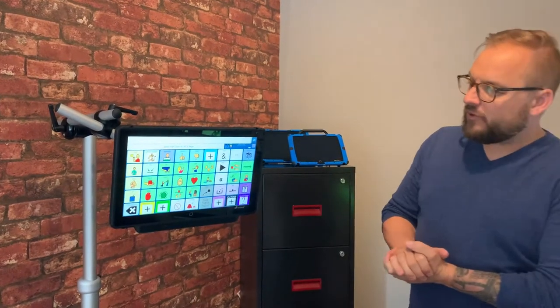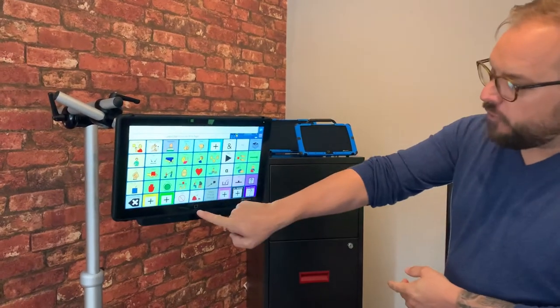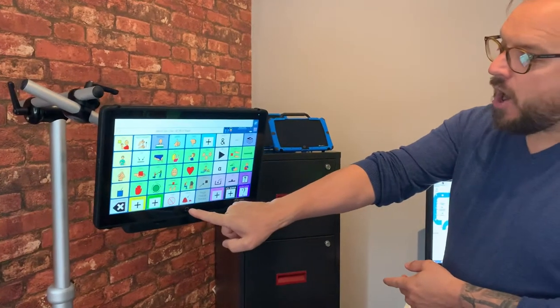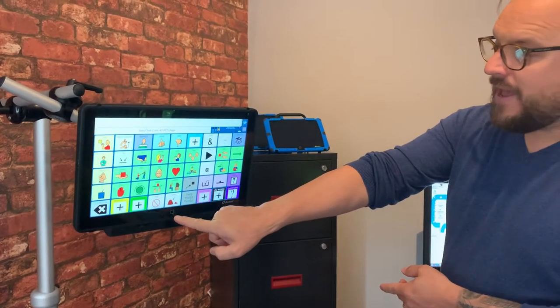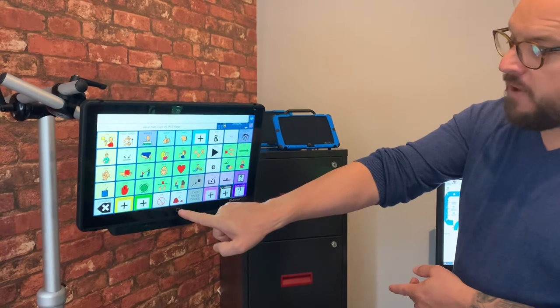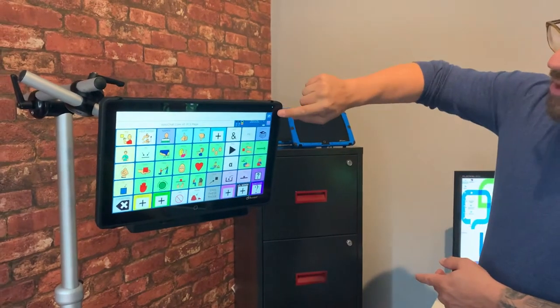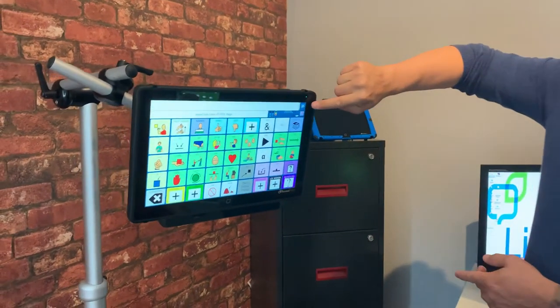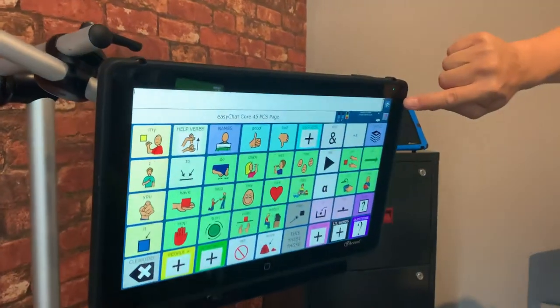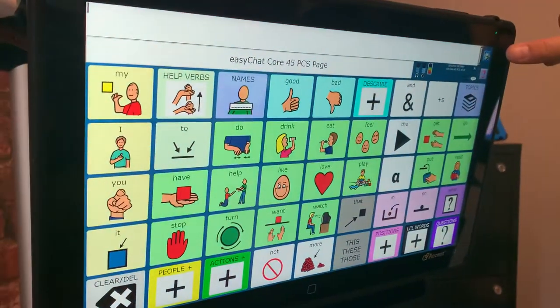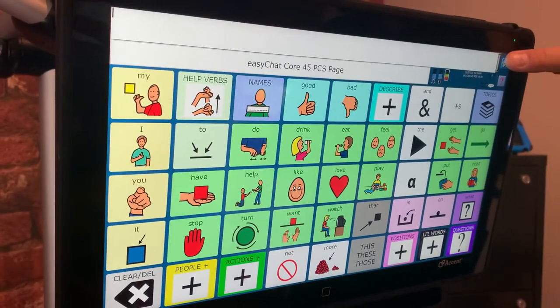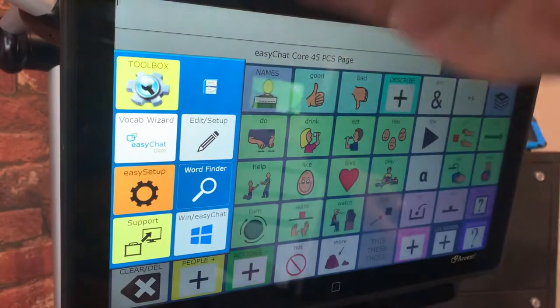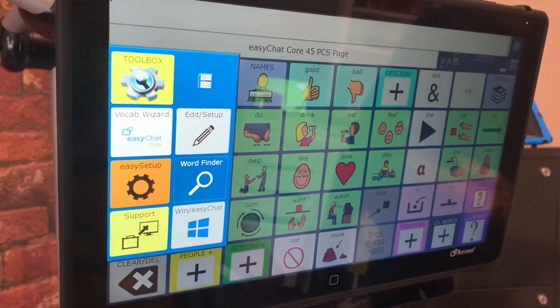So a couple of things I want to start off with is first of all you have a menu, a home or a tools button. It's this white button at the bottom of the screen or you can press this cogwheel that's also the menu, the home or the tools button and by pressing that button once it will bring up these menus here, those seven menus.